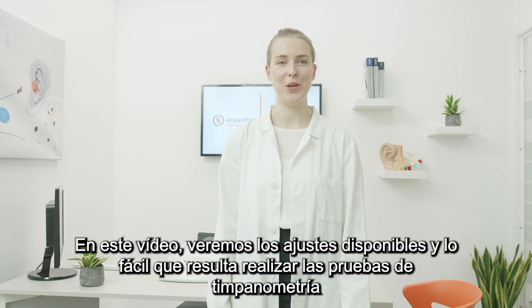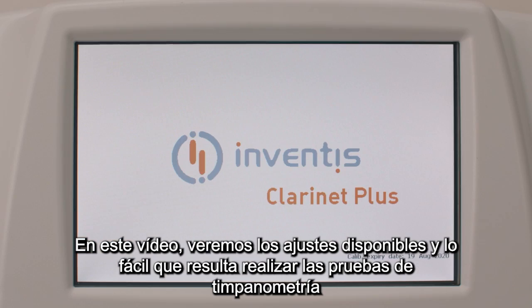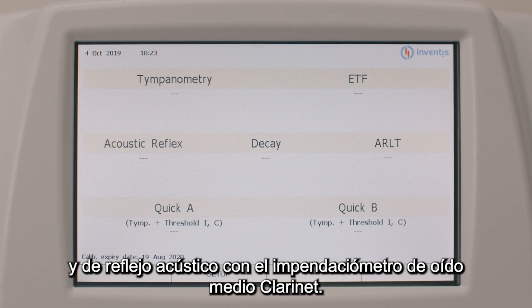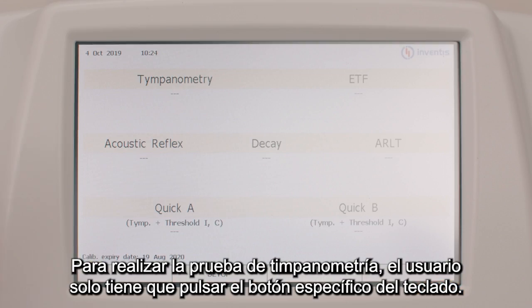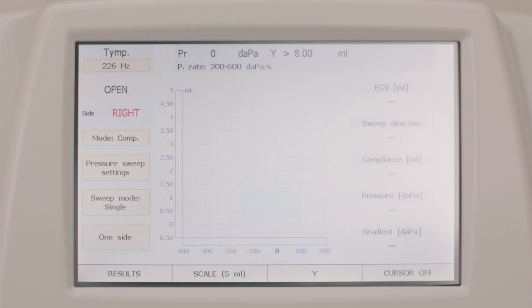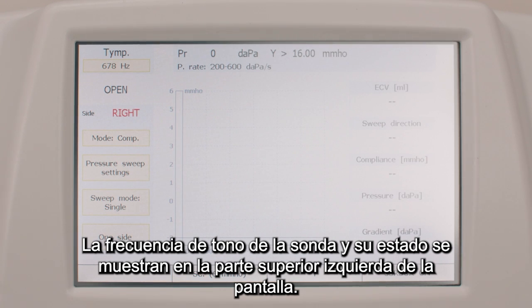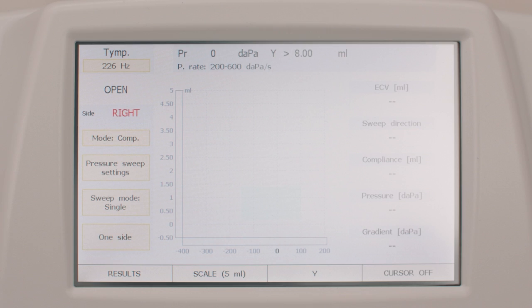In this video, we will have a look at the available settings and at how simple it is to carry out the tympanometry and the acoustic reflex tests using our Clarinet's middle ear analyzer. To conduct the tympanometry test, the operator should simply press the dedicated button on the keyboard. The frequency of the probe tone and the status of the probe are indicated at the top left of the screen.